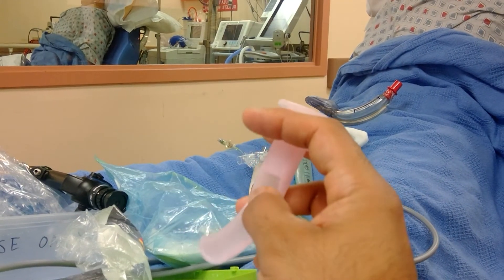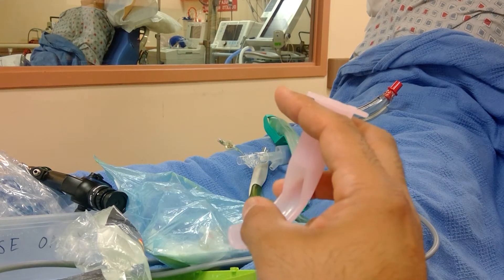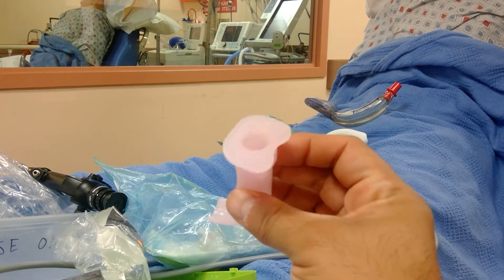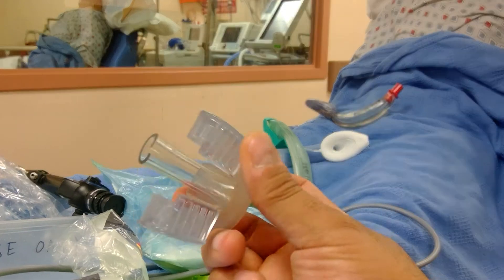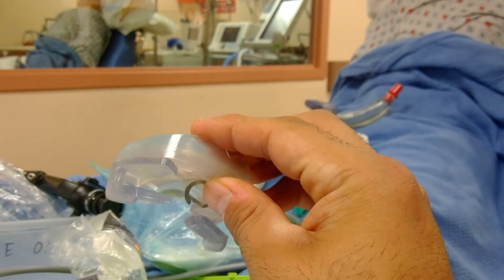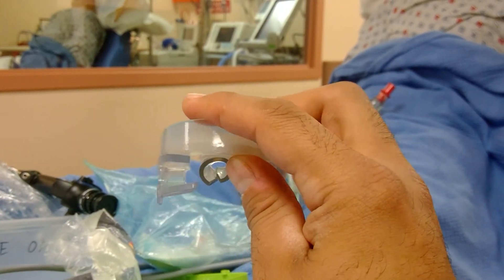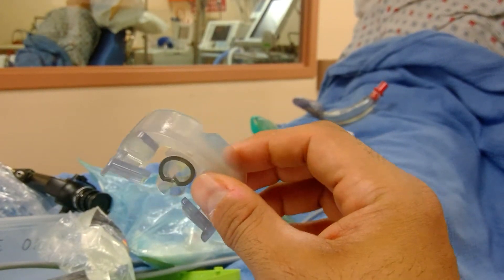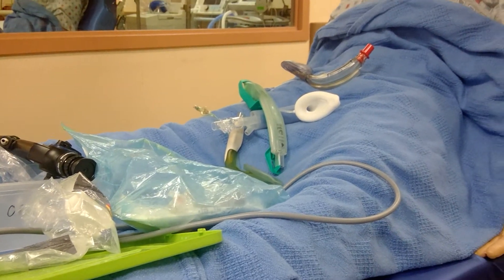With the fiber optic going into the mouth, I would almost be forced to tilt upwards to guide to where you need to intubate. So a device like this or this would be what I'd add to an airway intubation. This is how the fiber optic comes out, and this is how you insert it in the mouth like a bite block. This would not work for angioedema.